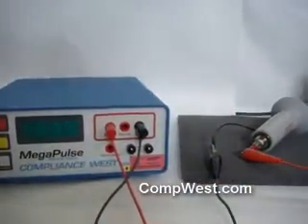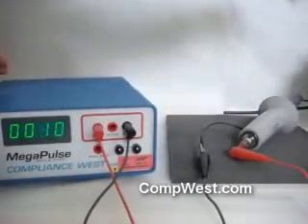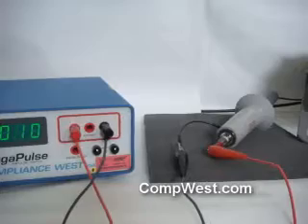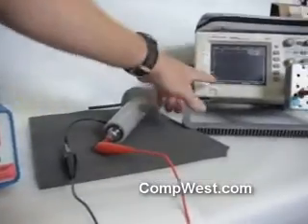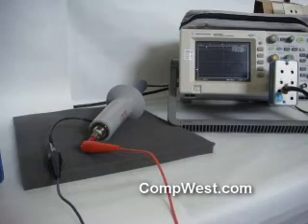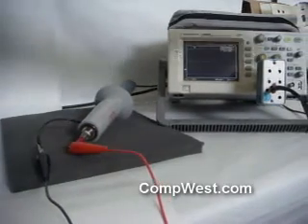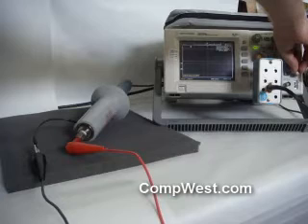Turn on the Megapulse DeFib5 and the oscilloscope. Adjust the oscilloscope for 1 kV per division and 500 microseconds per division. Next, adjust the trigger level of the scope to approximately 1 kV.